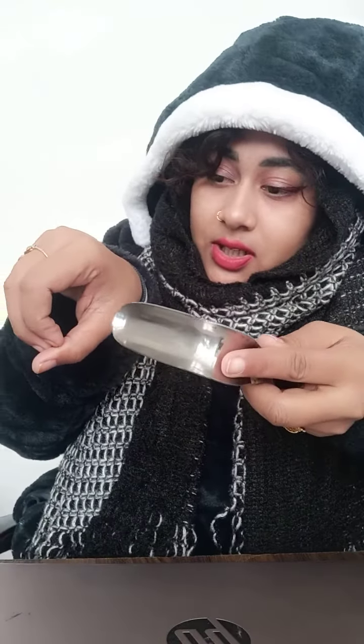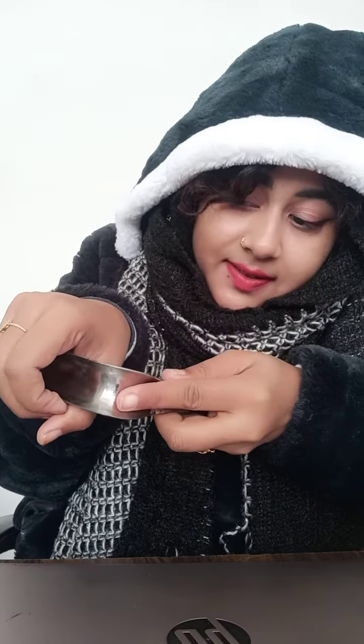First of all, you have to put it in the lateral position. This is your vagina — you insert it in the lateral position. Then you have to straighten it gently. Then you have to put it in the lower position. What will happen? This is your vagina and cervix — you will get to see both of them clearly.